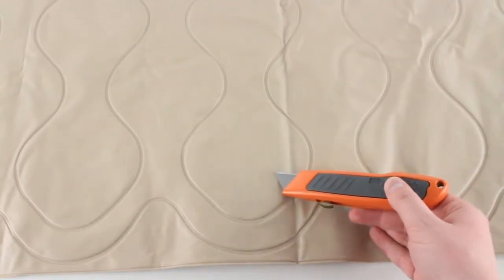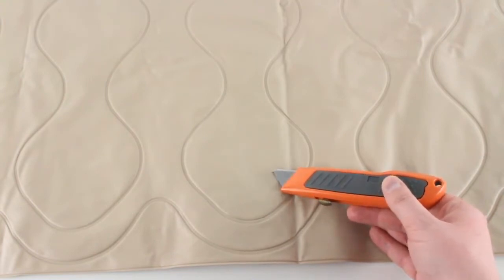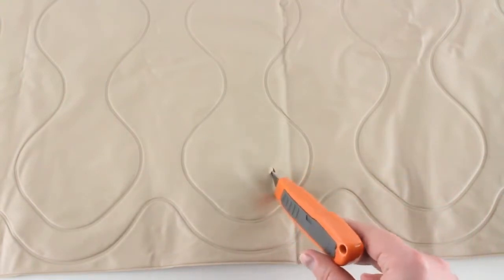Okay, this is going to be a quick video on how to patch any hole, tear, or puncture in one of our alternating pressure mattresses or pressure pads. Here I've got one of our alternating pressure pads. Outwardly it looks fairly intact, but if you'll notice here, we've cut a little hole just through there.